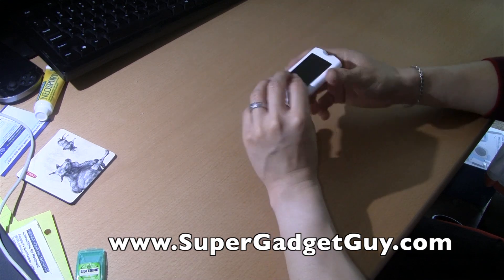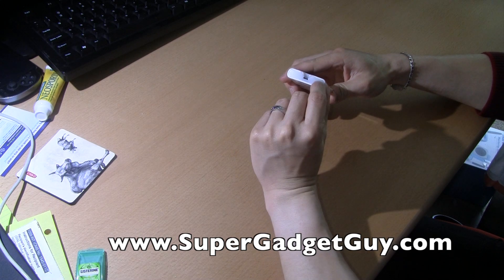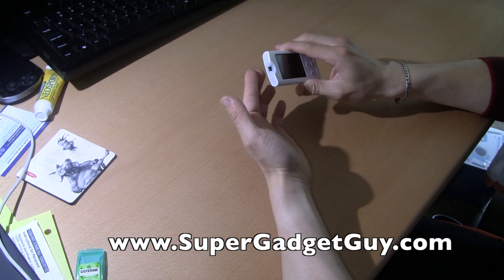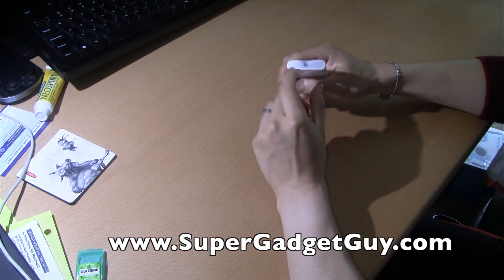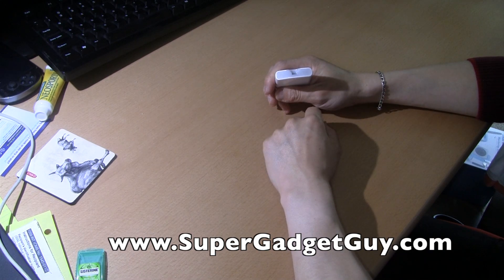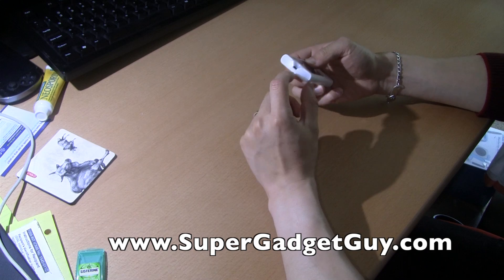I'm not going to turn this in and get another one because I'm not going to use it — I already used up all the strips. In terms of overall design, there is a sort of light that comes on at the insertion point, supposed to help guide the testing. It's completely useless. It's bright enough that you can see it, but not bright enough to shine on anything, and it certainly drains the battery.